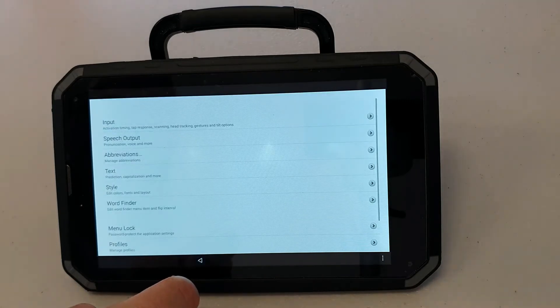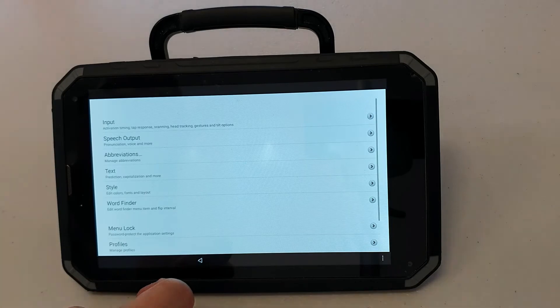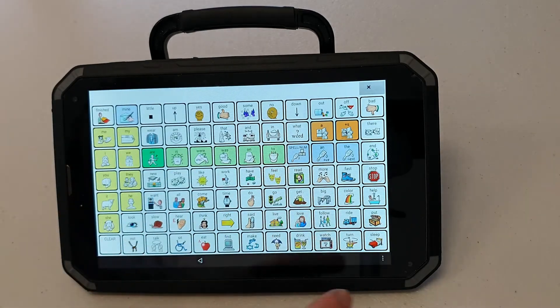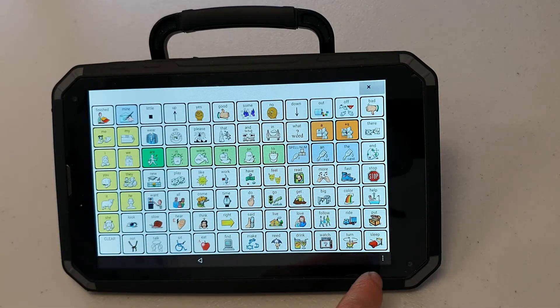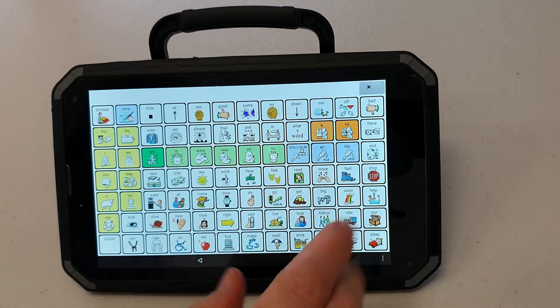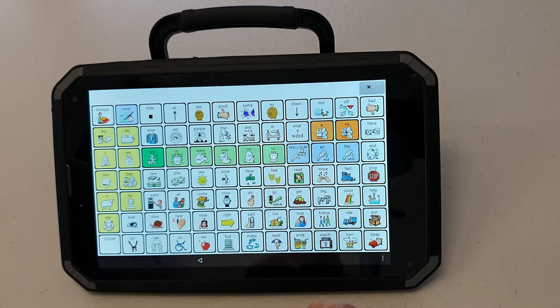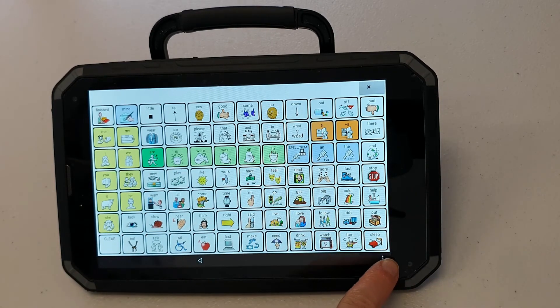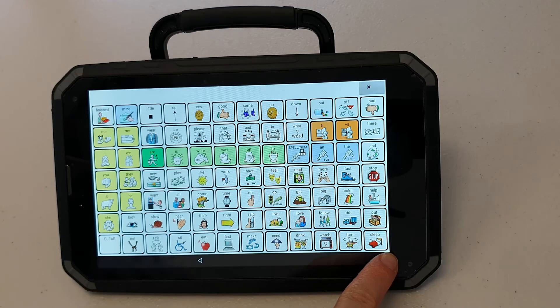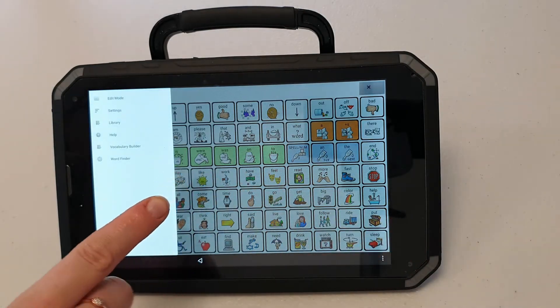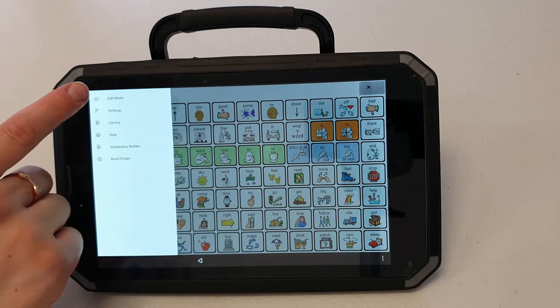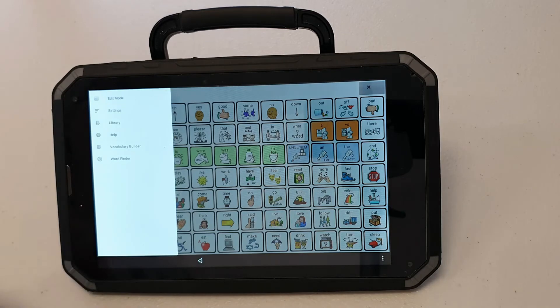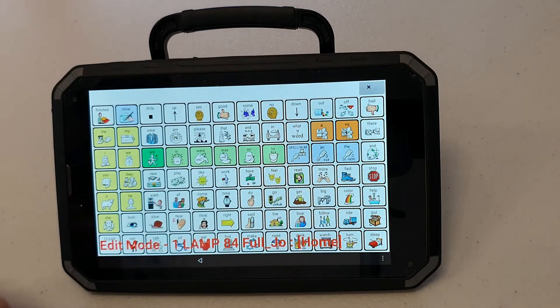So a few extra settings that we'll go through now will be the edit function on my device. In order to edit any buttons, add or modify them I'll need to turn edit mode on first. To do this I press my menu button and then edit mode.